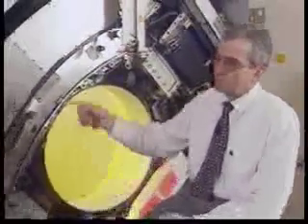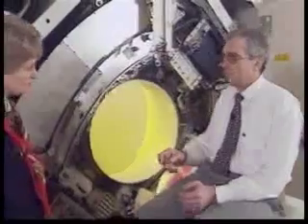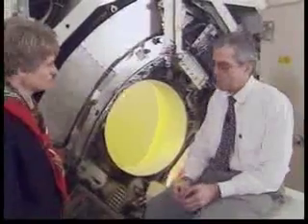What about rotation of the gantry? For a standard CT scan, we need to acquire projection data over a full rotation of 360 degrees. At the time when the high voltage was still supplied to the tube via wire cables, we had to reverse the direction of rotation from scan to scan in order not to twist the cables.